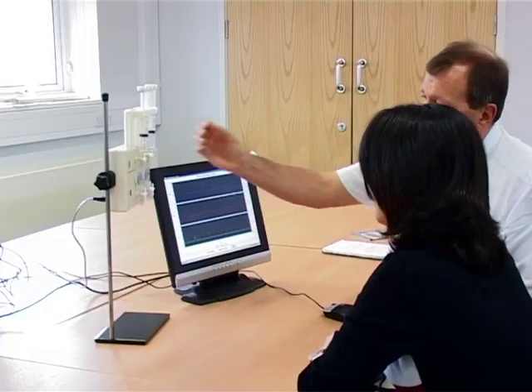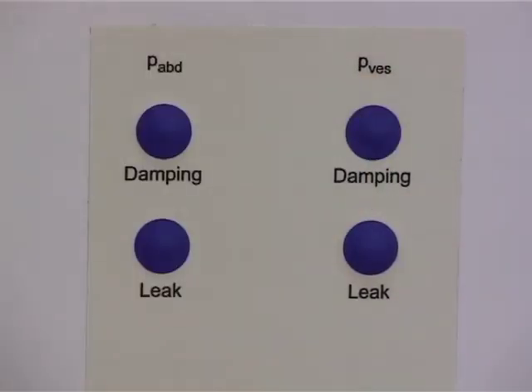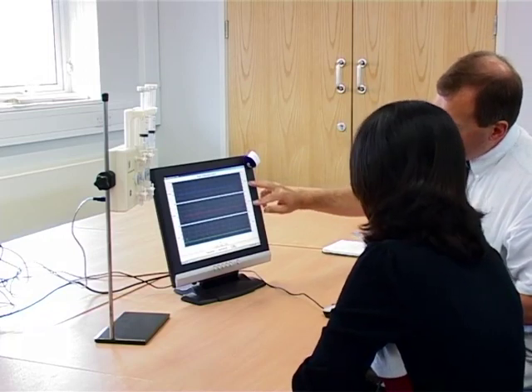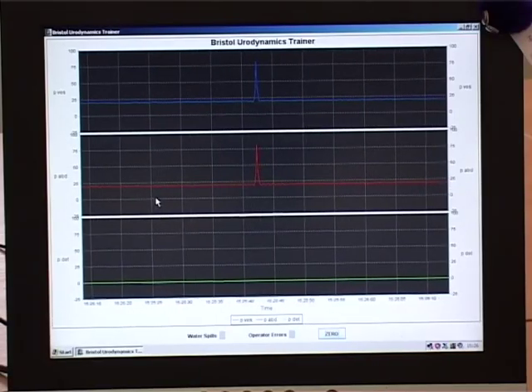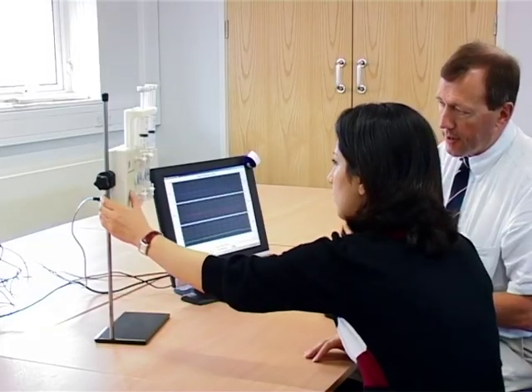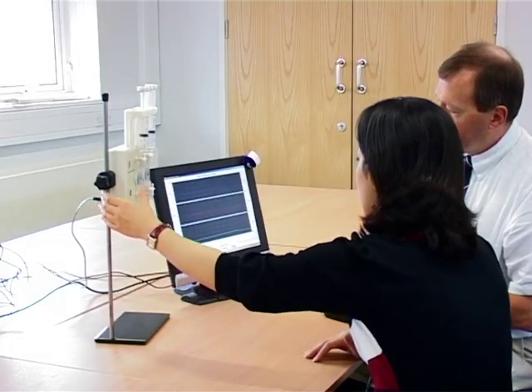For training purposes, the trainer can now introduce a simulation of an air bubble in the line by pressing either of the damp buttons on the rear. If a cough signal is generated now, poor transmission is displayed on the affected line.